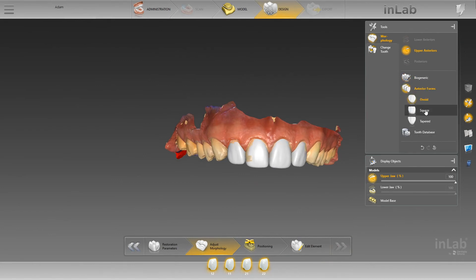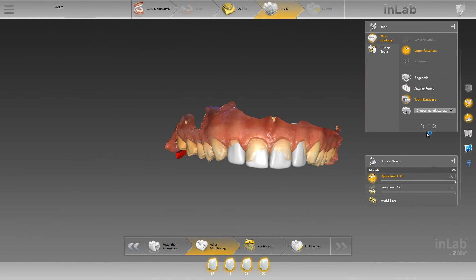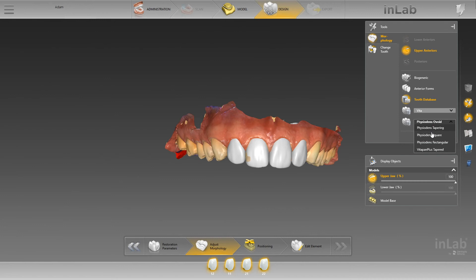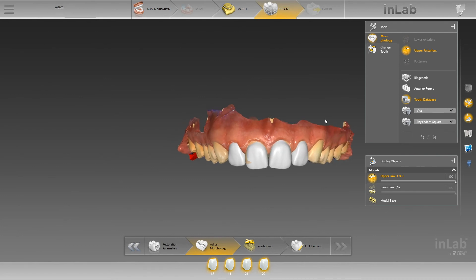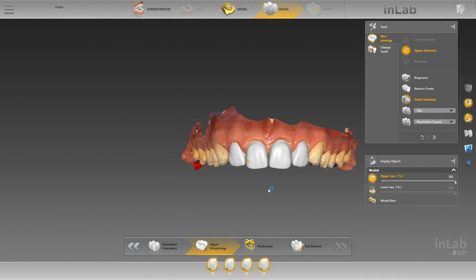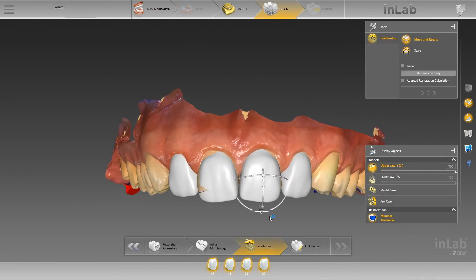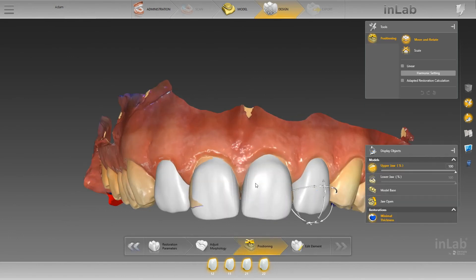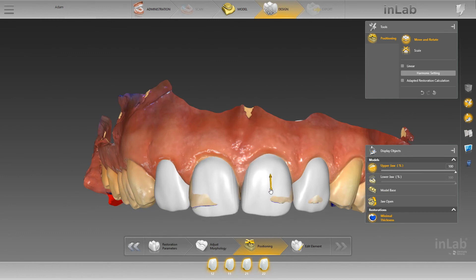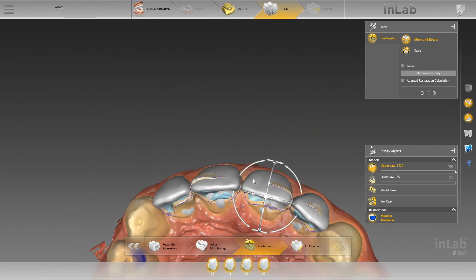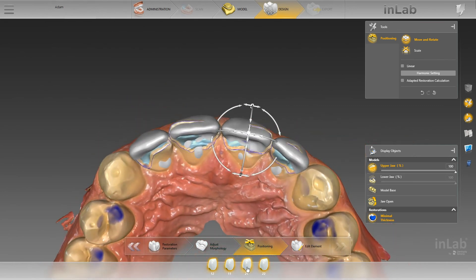The next stage — selecting the morphology — is just the same as usual. I'm going to pick something that looks along the same lines as the shape of the natural dentition already there. In this case we're probably going to pick a square shape for this patient, and then I'm just going to move these to suit the position I like and take things up a little bit, trying to blend what shows and get that midline right.